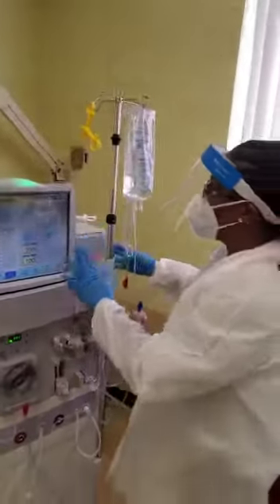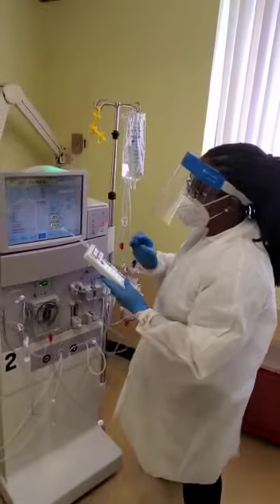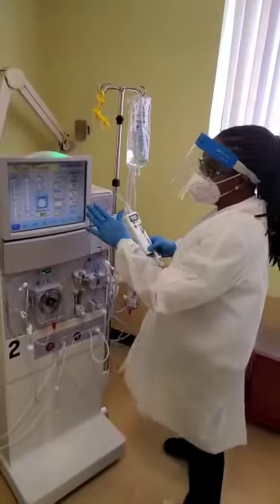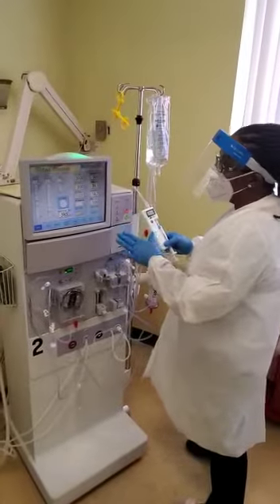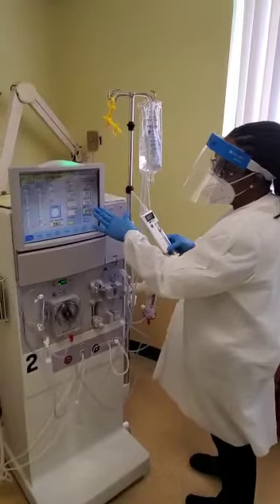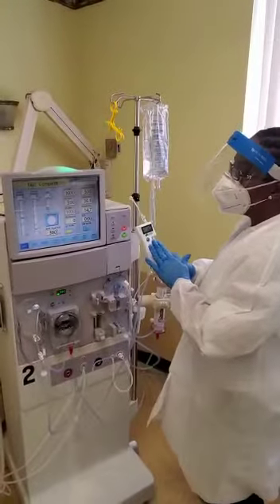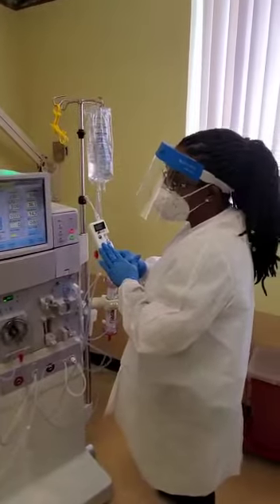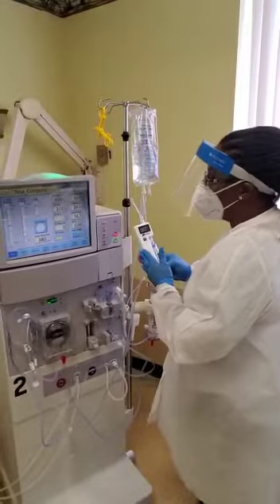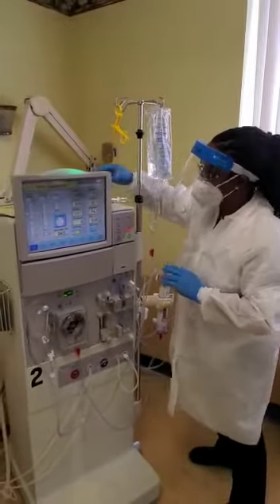After your test is complete, we're going to check your conductivity and pH on your Phoenix meter. pH is never displayed on the machine, but your conductivity is. The difference between the conductivity displayed on the machine and the Phoenix meter should be no greater than 0.2 and no less than 0.2 — so there's a plus or minus 0.2 difference. That's the only acceptable difference: 0.2 plus or minus.